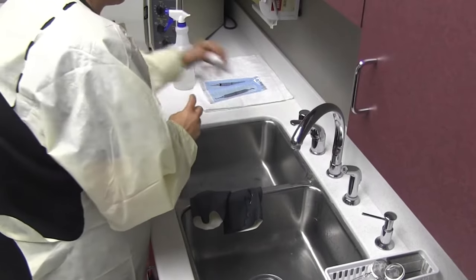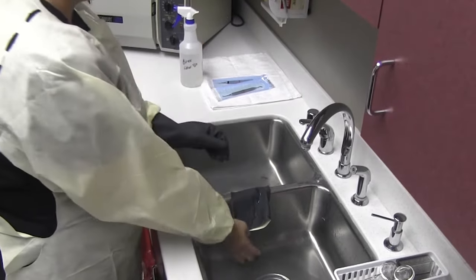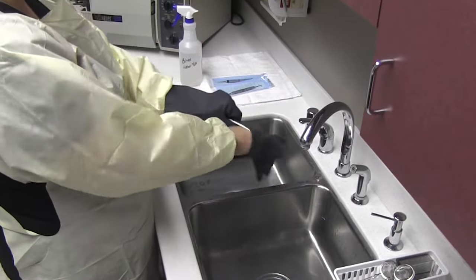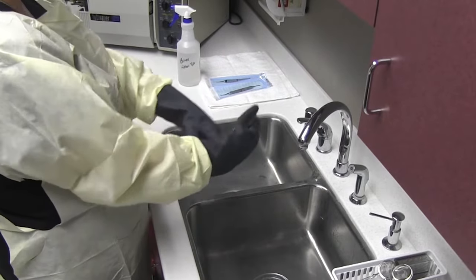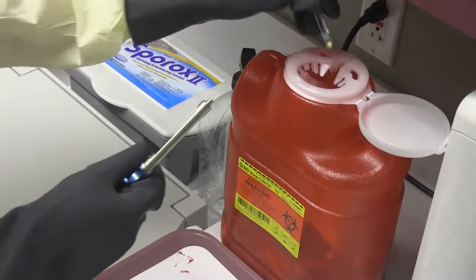Now, remove those gloves and wash your hands again. Put on puncture resistant utility gloves to protect your hands from sharps. Place all contaminated waste in the designated biohazard waste containers.